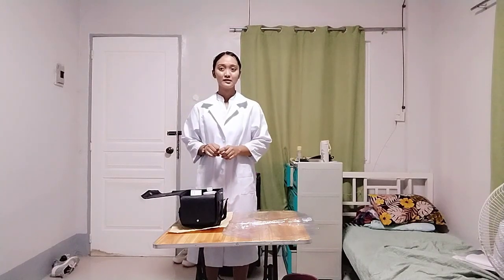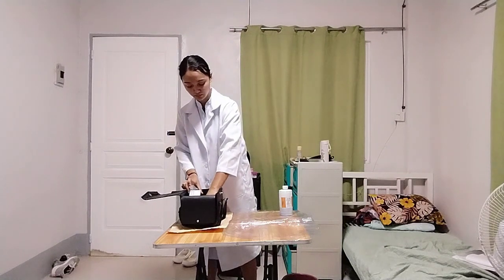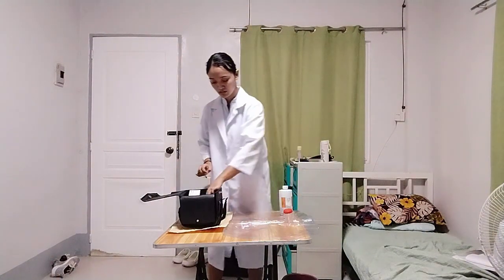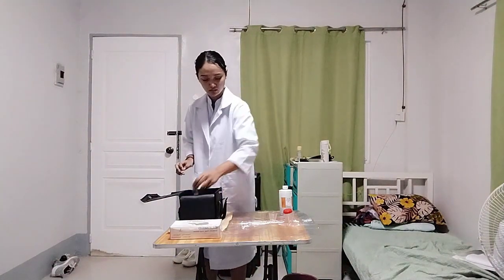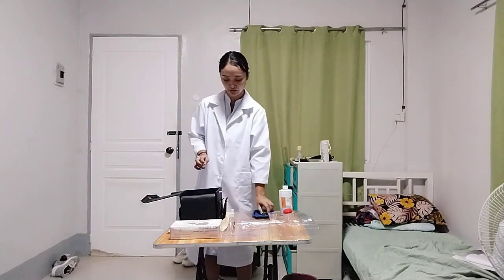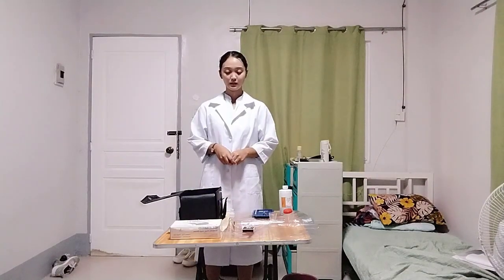necessary equipment needed, such as Benedict solution, alcohol lamp, sterile urine specimen bottle, small cup, clean gloves, denatured alcohol, test tube holder, test tube, and matchbox. And dropper. Put on clean gloves.